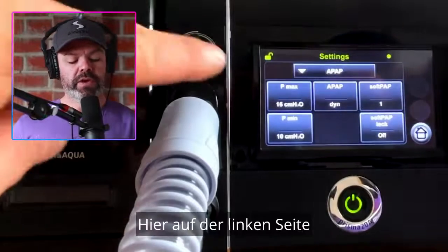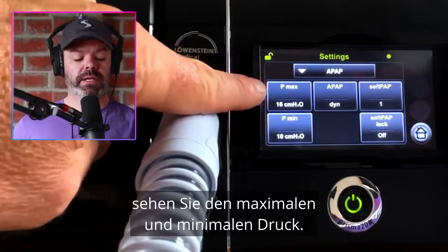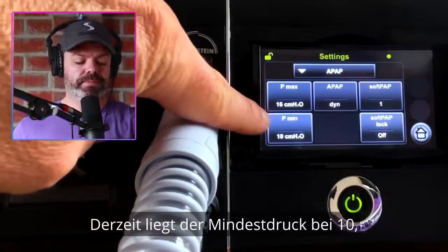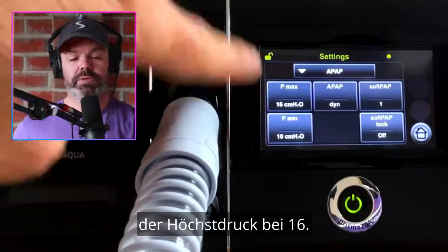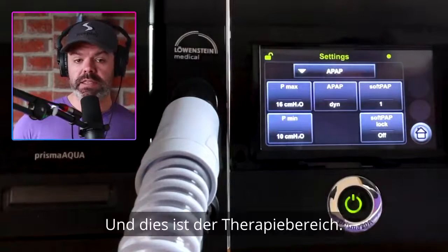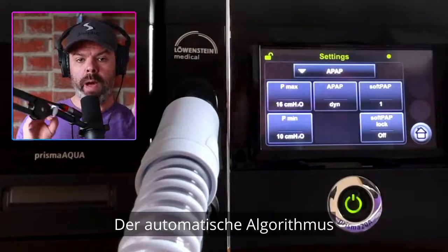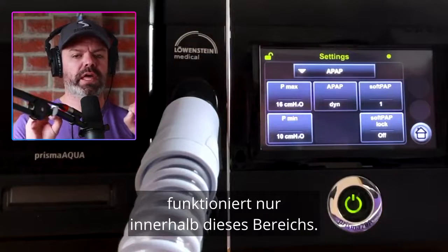Over here on the left, we have our pressure max and pressure min level. Currently pressure min at 10, pressure max at 16, and this is the therapy range. The auto algorithm will only work inside that range.